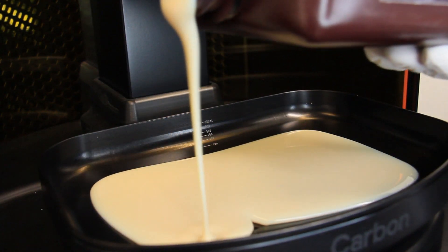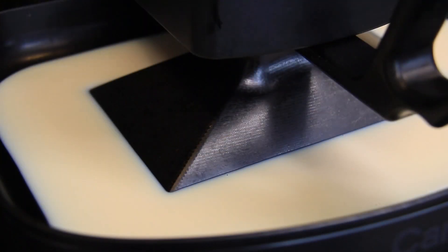The denture base and the denture teeth are printed separately, using the same procedure but a different resin.